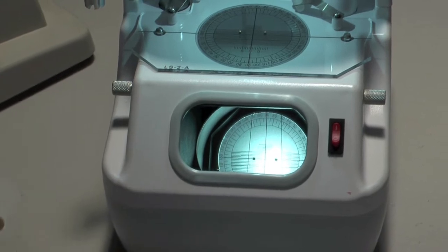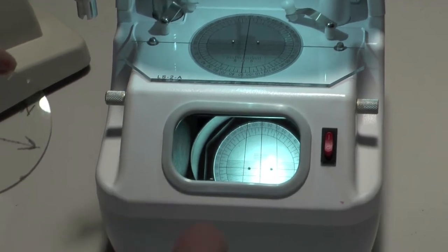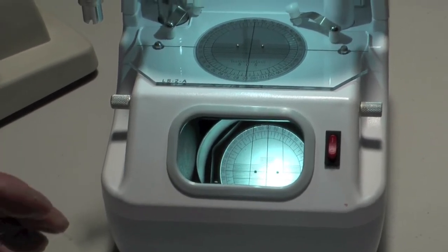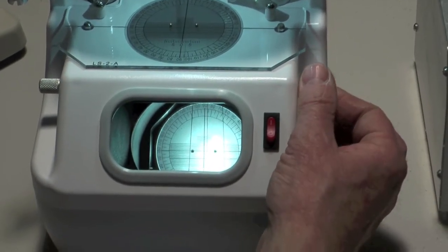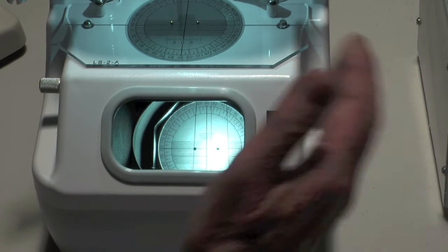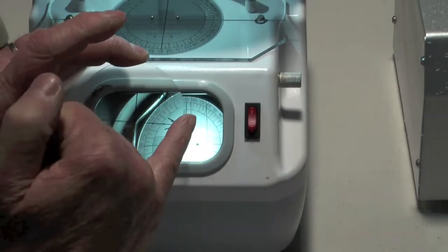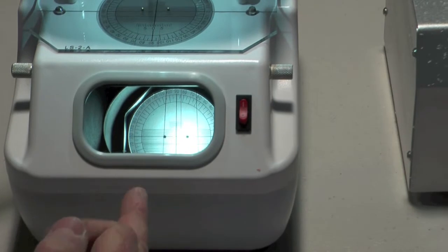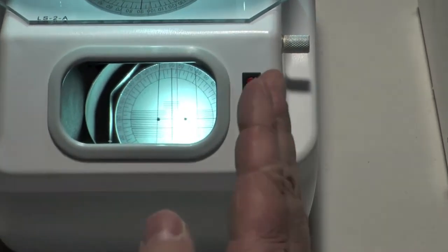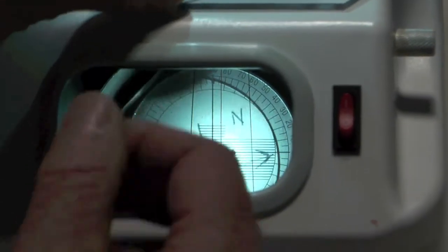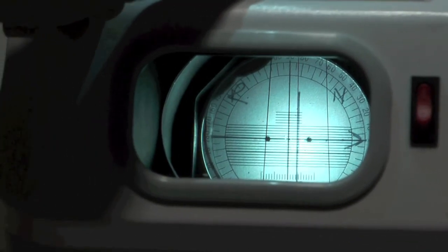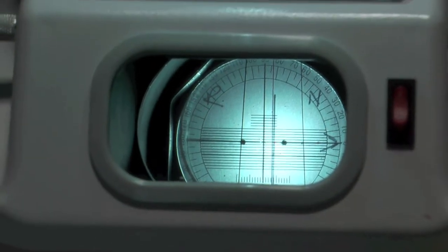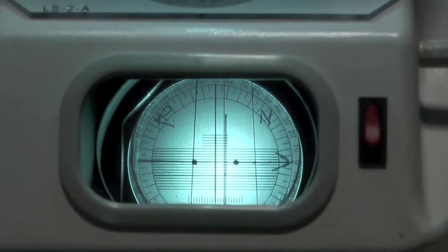And the left lens as well. We need to de-center towards the nose. So what we do is that we move that three and a half millimeters that way in the direction of the arrow. So you can see that central line is now being moved over by three and a half millimeters. And we then put this lens where that central line is. And there you can see that it's nice and positioned in the middle.